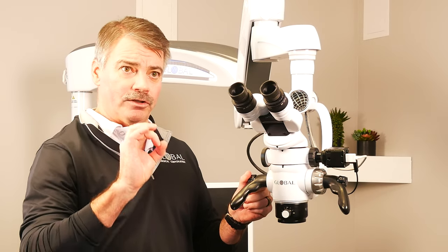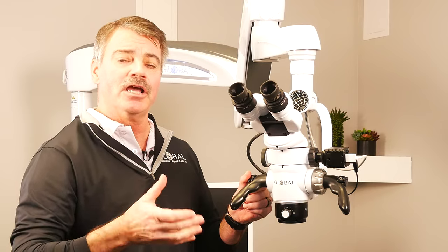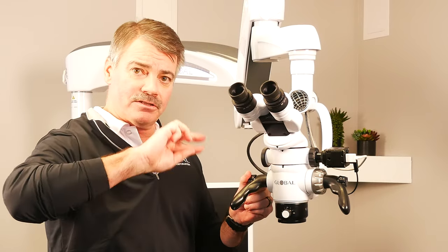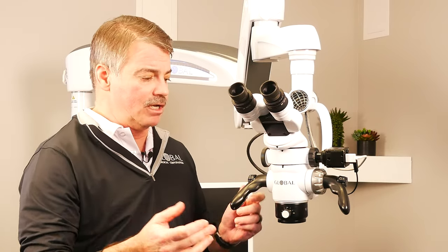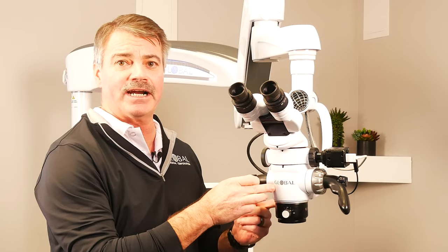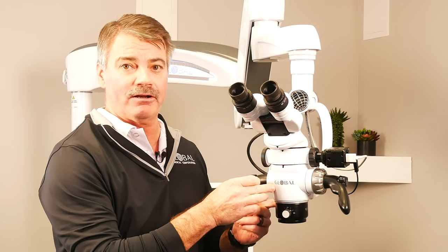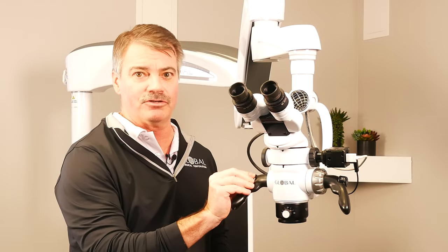If you look at the glass one way, it makes the image larger. You flip that to the inverse, it makes it smaller. That's essentially what's going on inside of this optical body by changing this magnification turret.